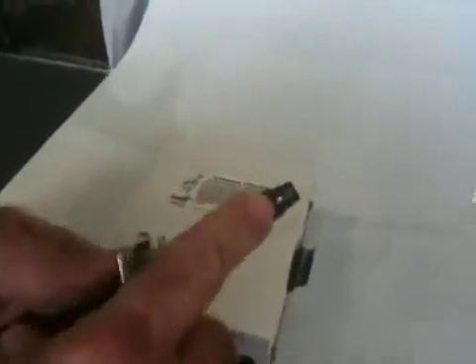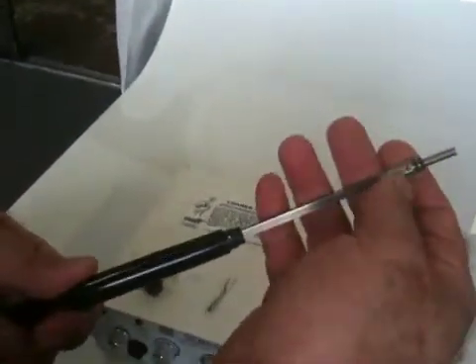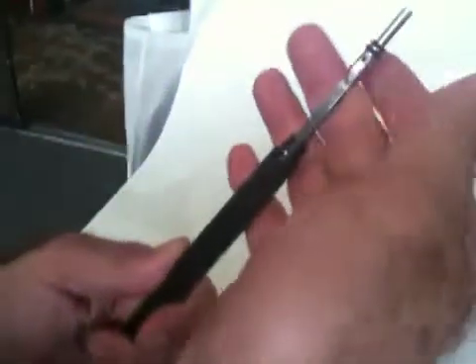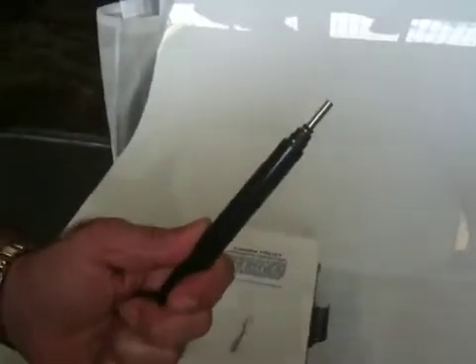On the Sonus handpiece, there's a white dot which is used to show you how to guide the insert in. The correct way of doing it is to line up the dot with the hole in the insert. It should just easily drop in. If it doesn't easily drop in, do not force it in.